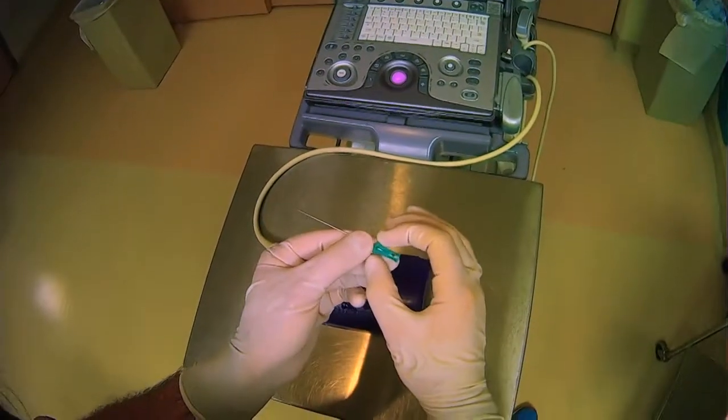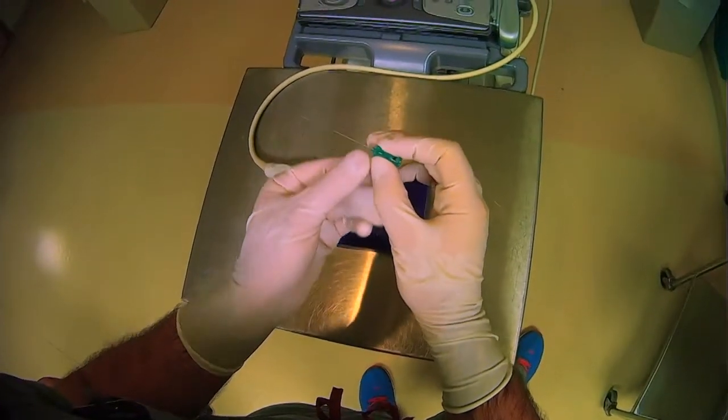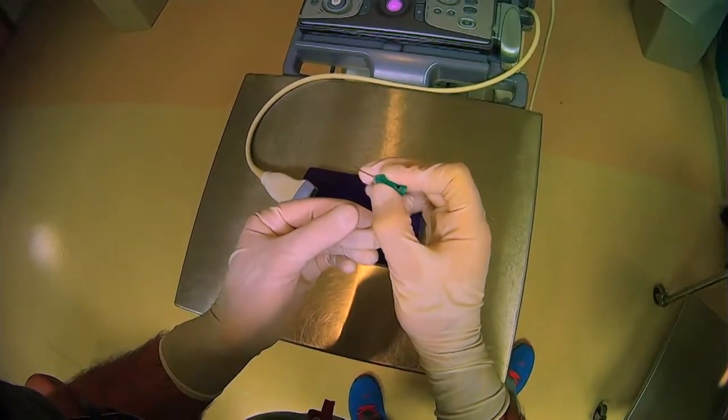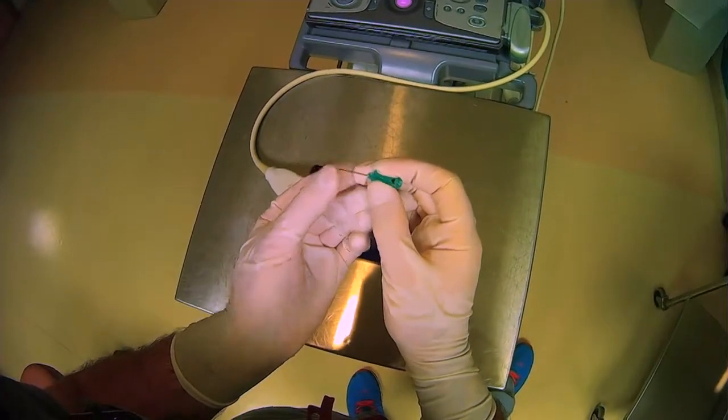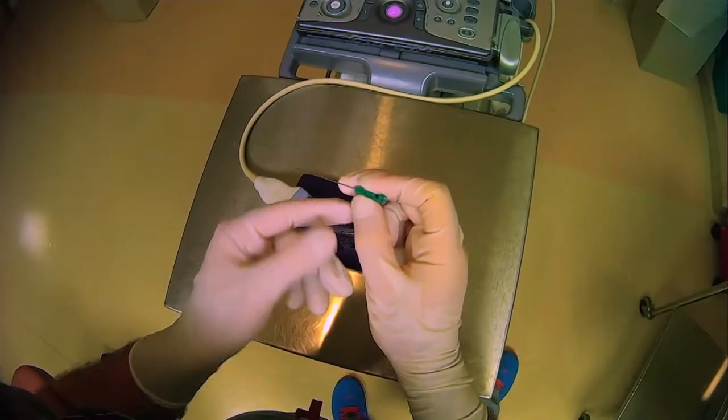And then you can hold the needle like this, pinching it. And then you can even put your middle finger right here to stabilize the needle as well.